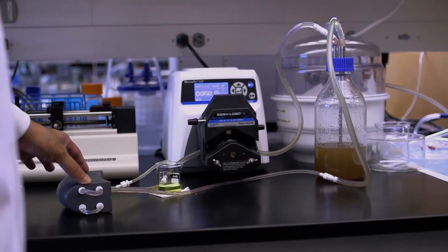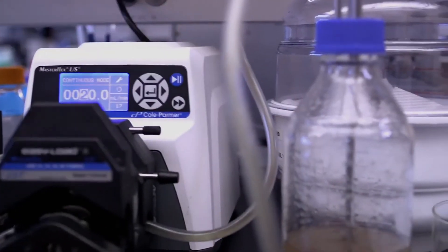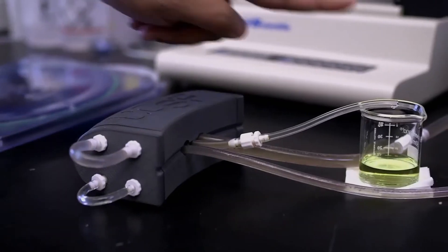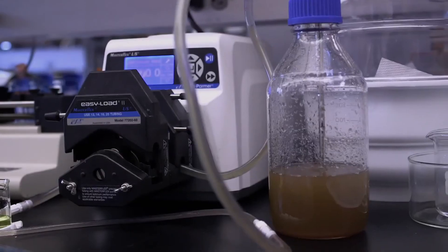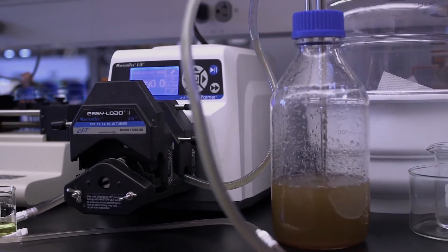So, what we have here is the prototype model. This is fake blood. Coming out here is our fake urine. In practice, we won't need a pump because the silicon membranes are so efficient that our body's own blood pressure will be able to drive the filtration.